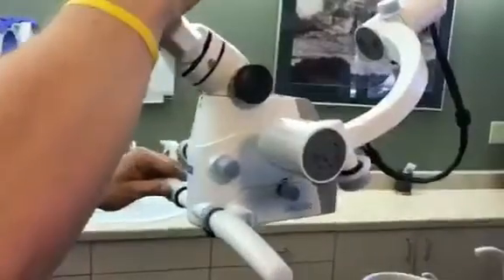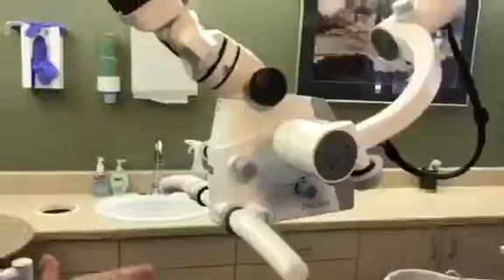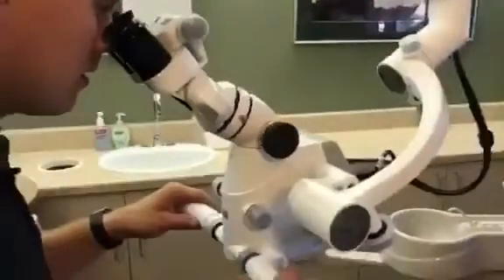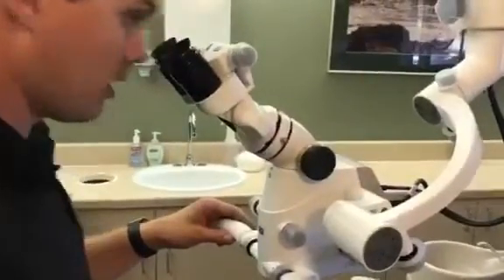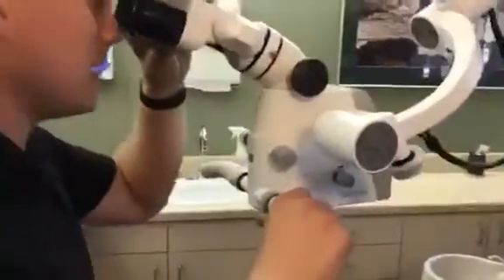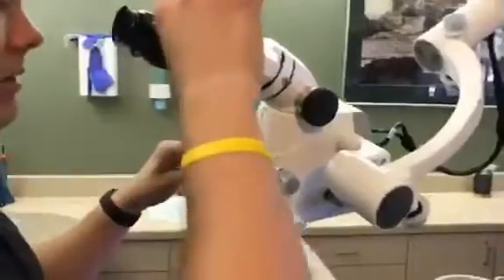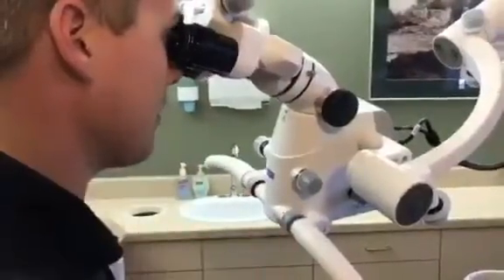Then you have up and down. So if you have a patient that's really small and low on the floor and your chair can't go as high as you'd like, you can get your microscope way down and view like this. Now if you're working on a long case, posture is the whole goal — get your patient up as high as you can. Ideally you want to be looking straight ahead. My microscope is tilted, but I'm still looking forward.